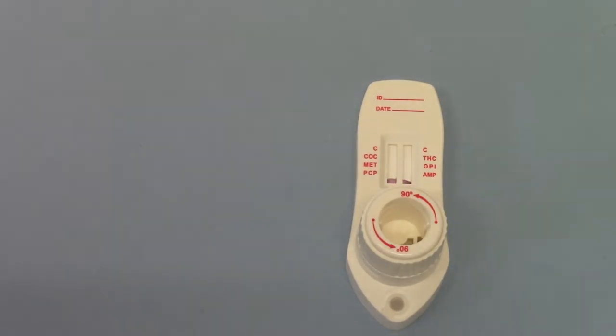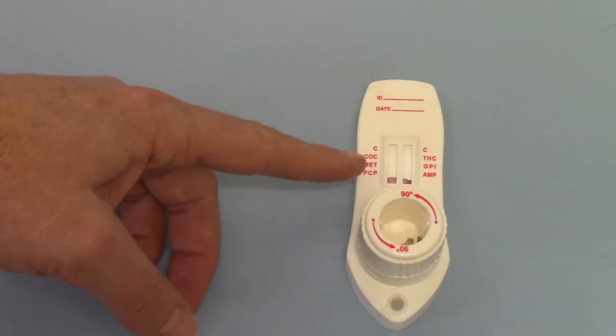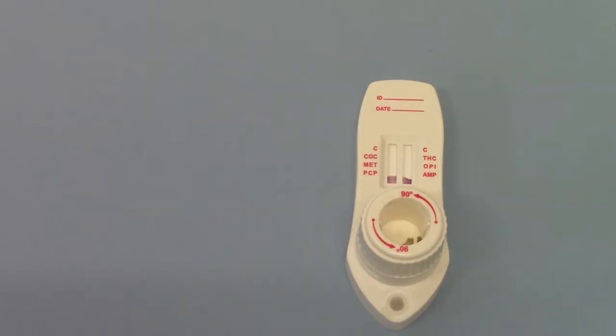And what you can start seeing here is, if we just show you here, the pink dye starting to run both sides of this membrane. It will not run until you hear that audible click.